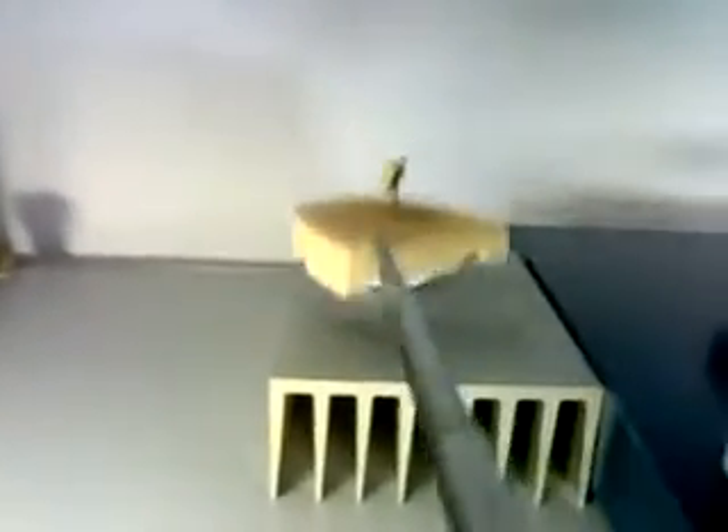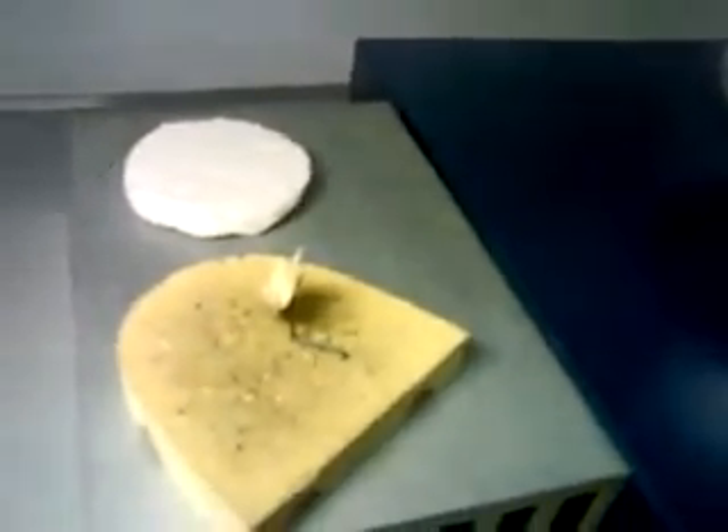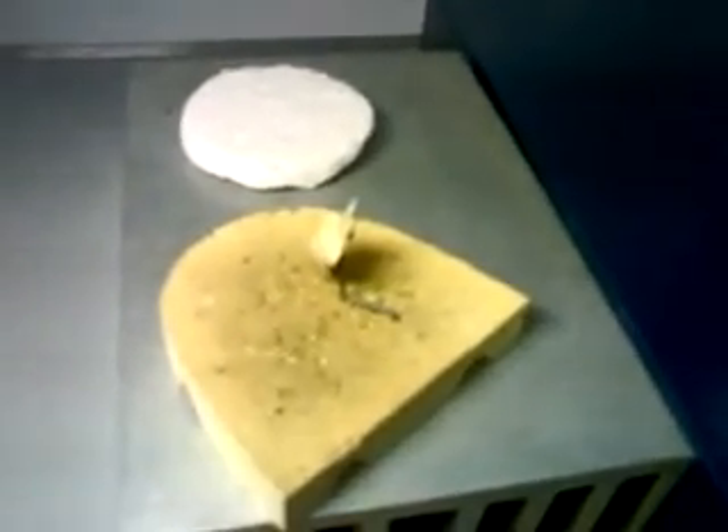And that's it with what's concerned with opaquing. Of course, this is a single unit, which makes things very easy. But of course, a larger span bridge or surface to be treated makes things a little bit more technical. From here we will proceed with our porcelain build.